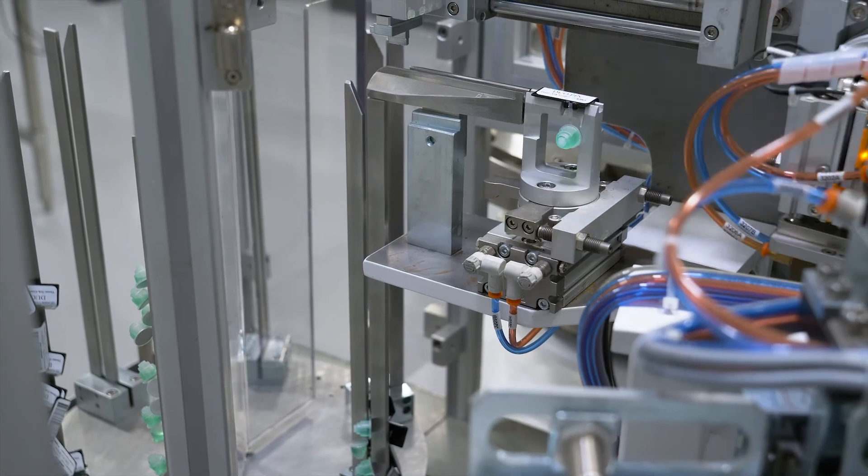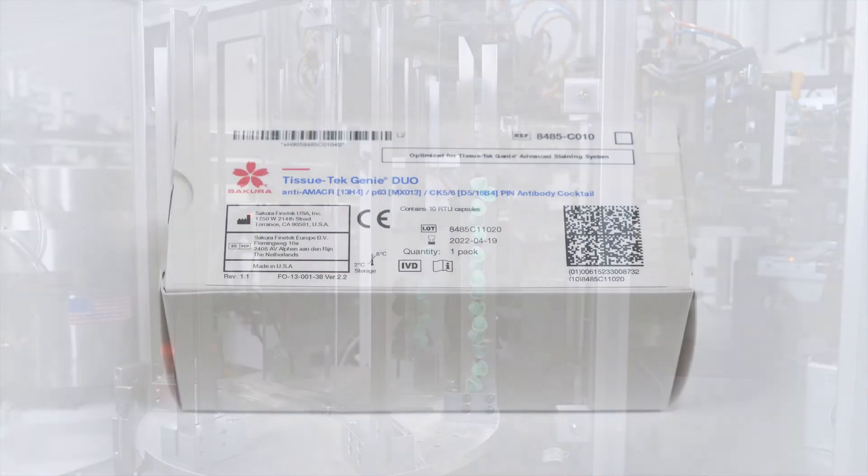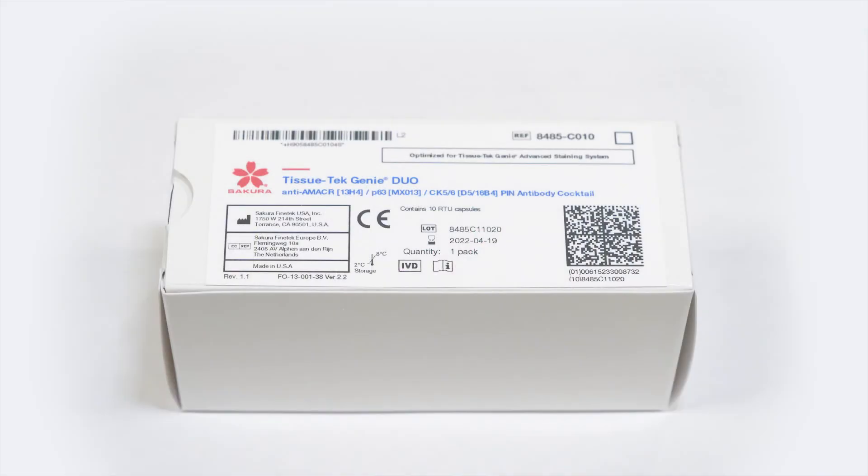At the end, the capsules with tags are stacked for packaging. The finished product contains 10 capsules and can be conveniently placed into your refrigerators.